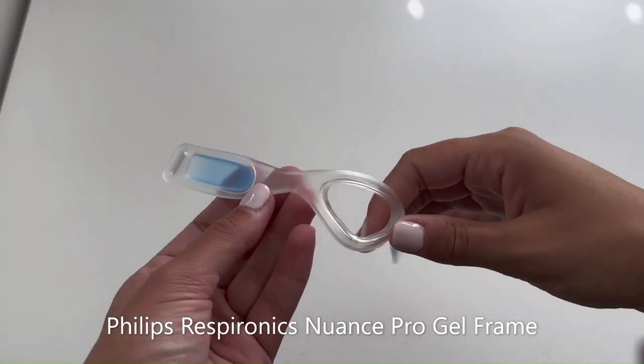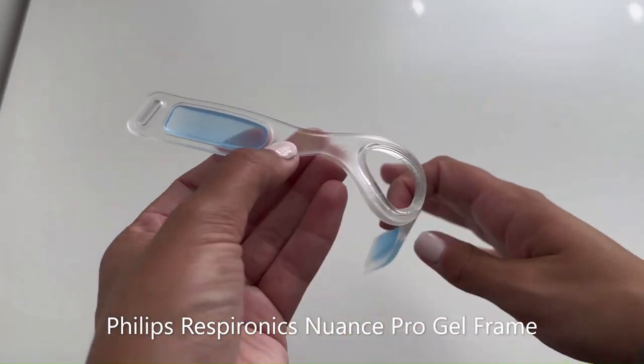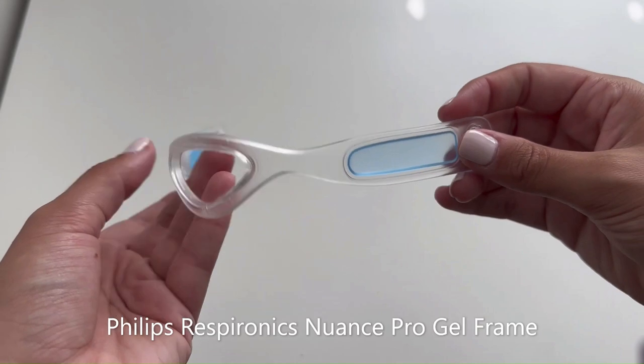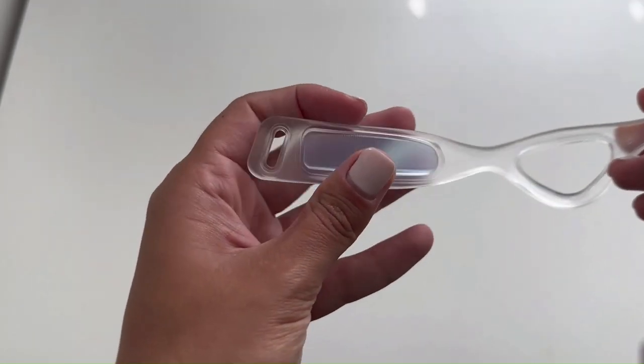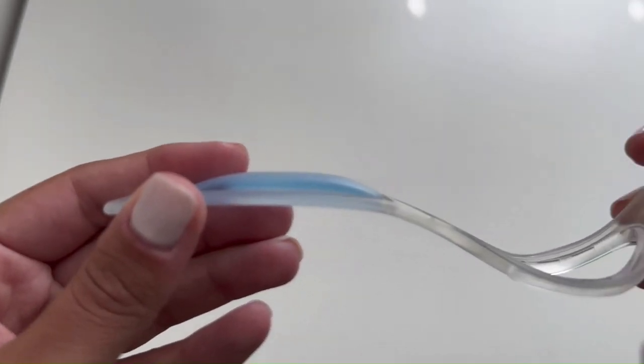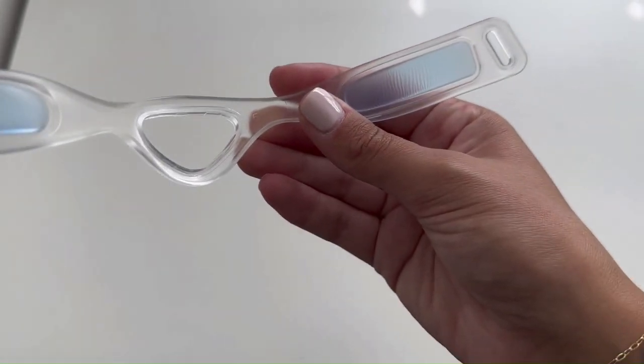Philips Respironics Nuance Pro Gel Frame is designed to perfectly fit to a user's face for a secure seal. It will not cause irritation to the face and nasal area, intended to improve sleep therapy.